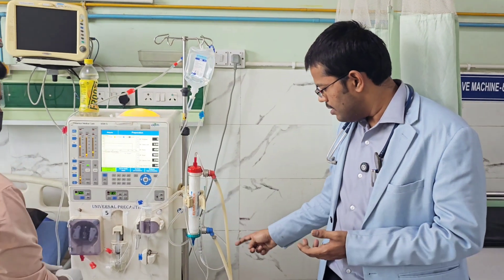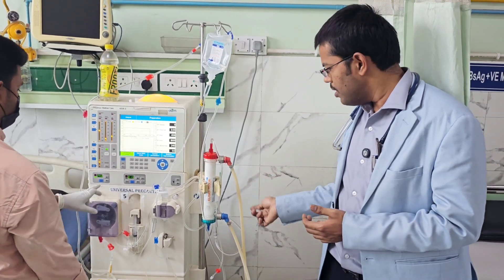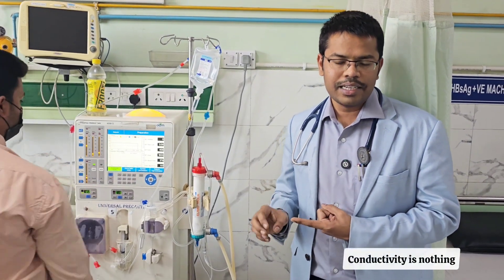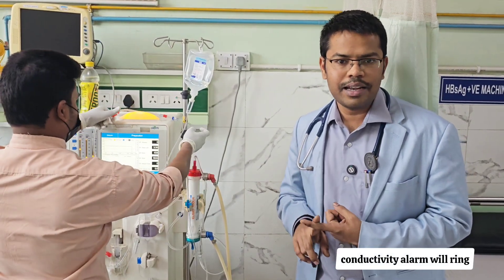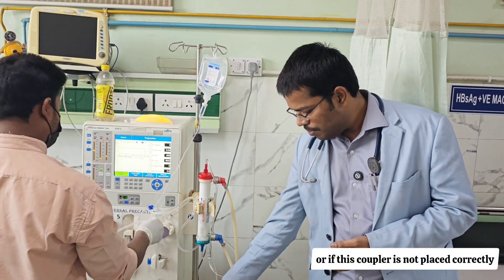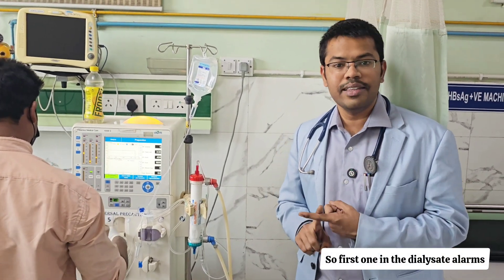Now coming to the dialysate circuit-related alarms. The dialysate comes from concentrate part A, part B, and water — all three are mixed to form the dialysate circuit. The most important and most common alarm is the conductivity alarm. Conductivity refers to the amount of electrolytes in the final dialysate. When it goes high or low, the conductivity alarm rings — commonly when the concentrate can is empty, water supply is cut off, or the coupler is not placed correctly.